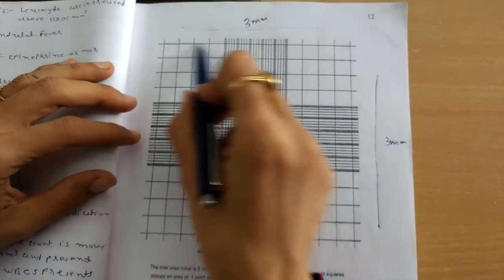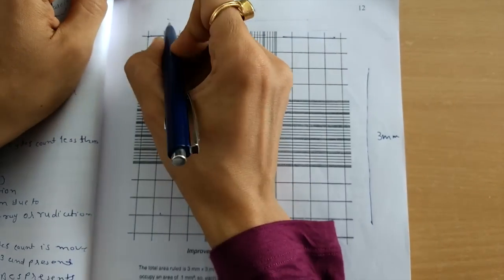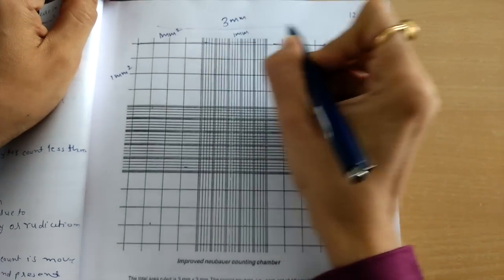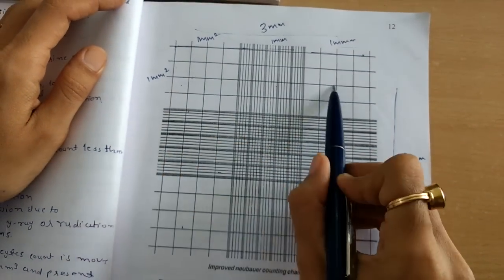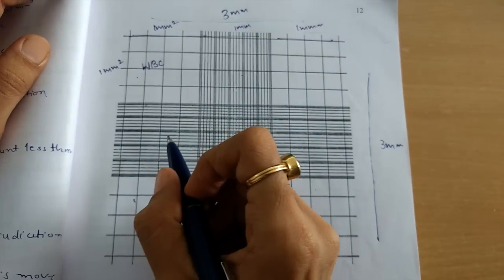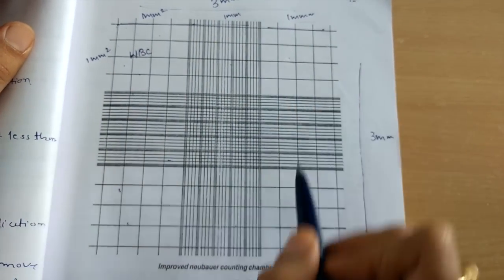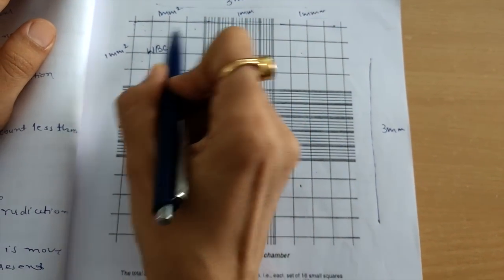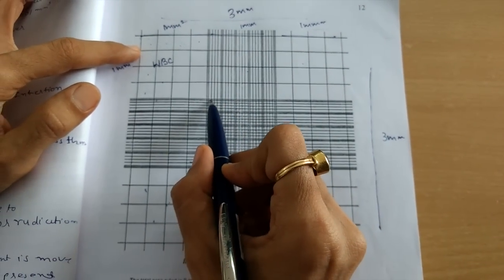Okay? And further, this counting grid is divided into 9 squares of 1 millimeter square area. This is 1 millimeter by 1 millimeter. This is again 1 millimeter. This is 1 millimeter. Okay? Of these 9 squares, the 4 corner squares are employed for the counting of WBC. So they are known as WBC counting areas or WBC counting squares. These 4 squares, you can see here 1, 2, 3 and 4. These 4 squares are further divided into 16 small squares. You can see here 1, 2, 3, 4 and these are 4. 16 small squares, or you can say medium size squares, because this central one has the smallest ones.